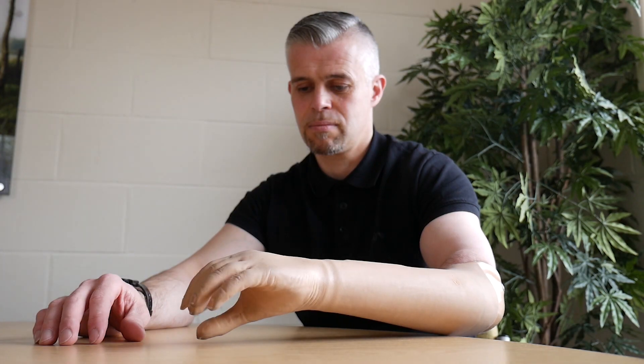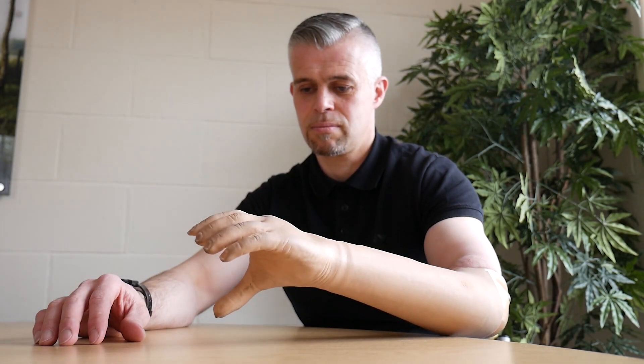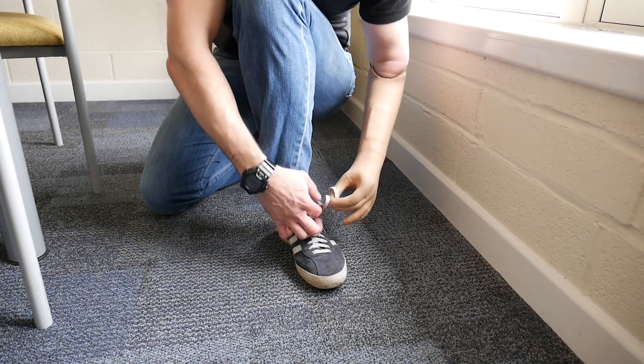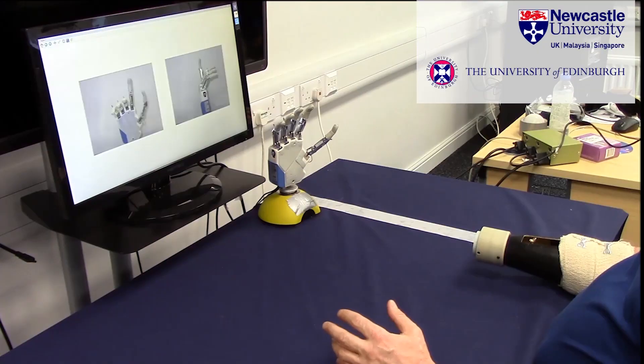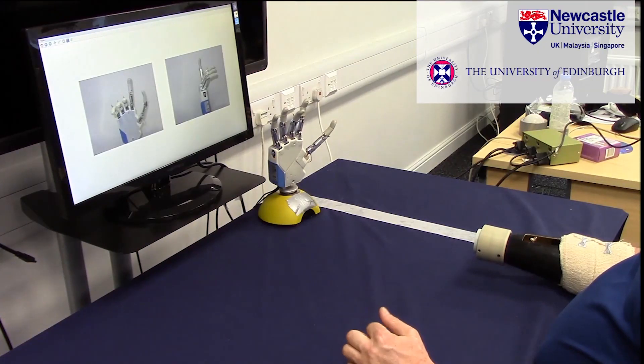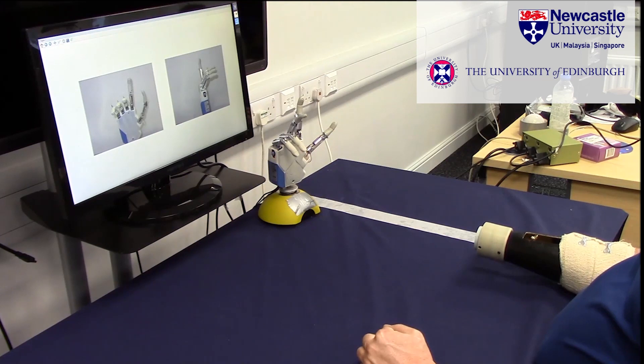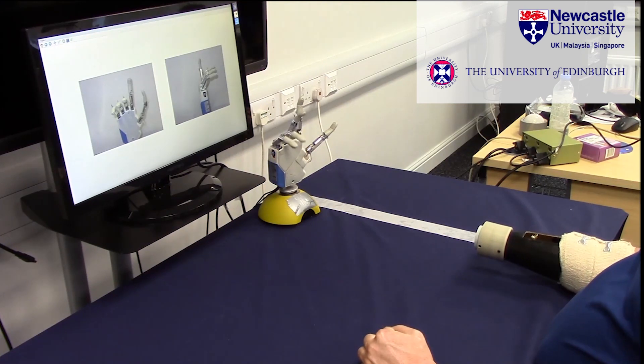So-called myoelectric hands use electrical activity in the remaining muscles to send control signals to the motors of the prosthetic hands, but the number of signals you can record is limited and that limits the movements you can make. In addition to that, the lack of feeling or feedback given to the user leads to unnatural control.